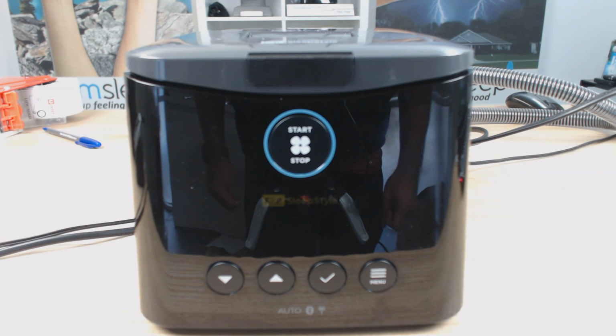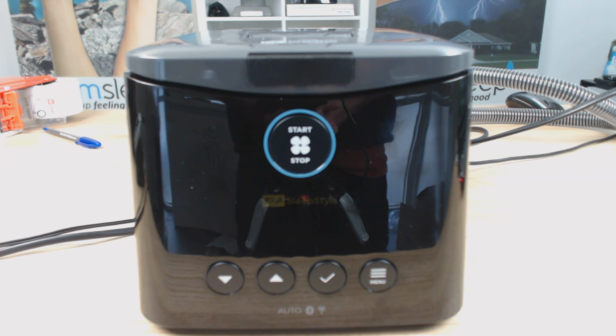Thanks for tuning in to part 3 of our 3-part series on the new Fisher Paykel SleepStyle device, where we will be going through what's known as the clinical settings. Now, for those of you that don't know, the clinical settings are one step above your patient settings, and it's in the clinical settings that we are able to change things such as the CPAP pressure, the upper and lower limits of the auto adjust pressure, and a few more advanced setup features.